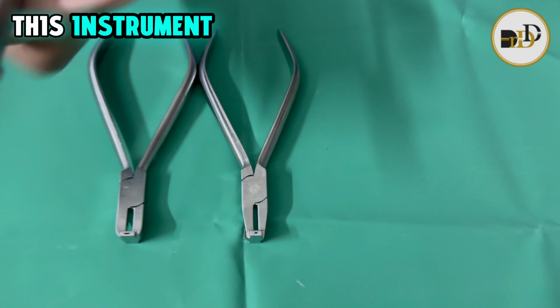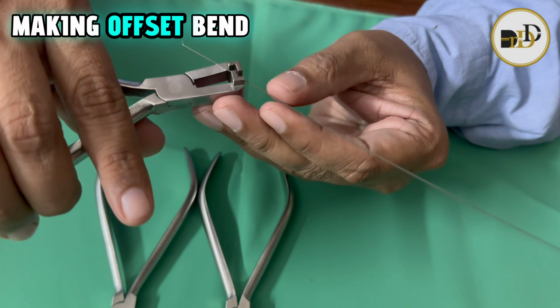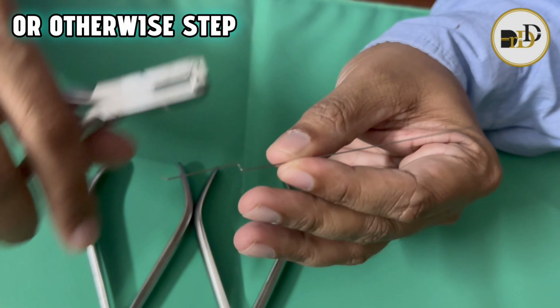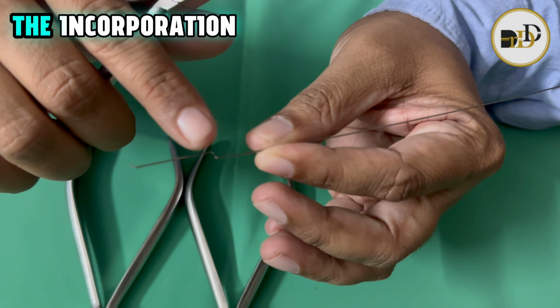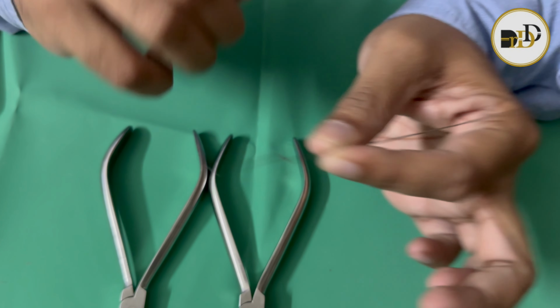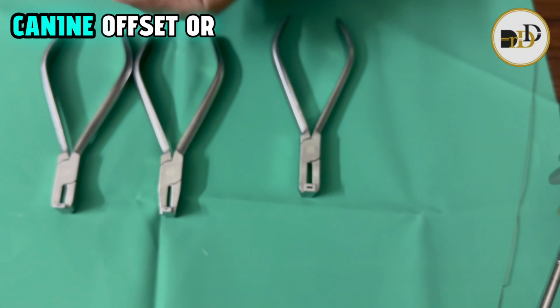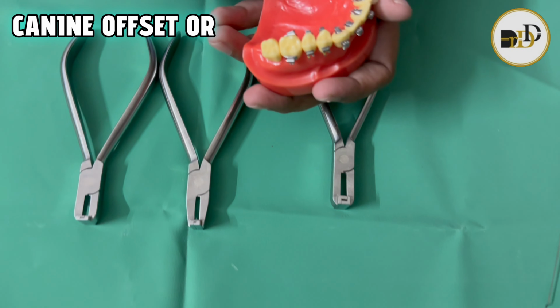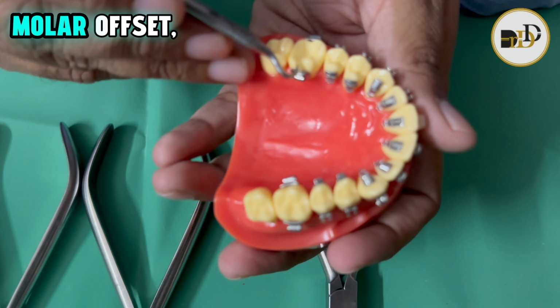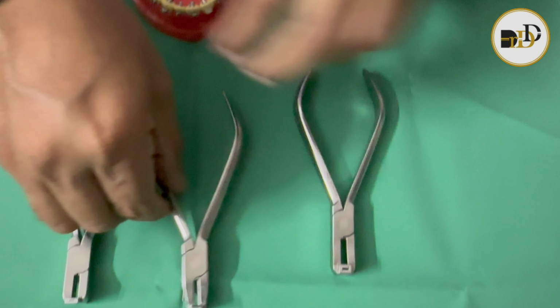This instrument is useful for making an offset bend or step bend for incorporation in the wires, whether giving a canine offset, premolar offset or molar offset.